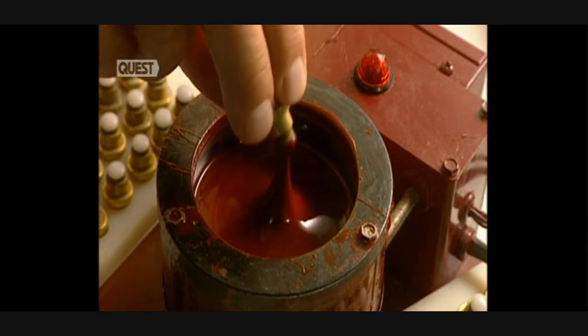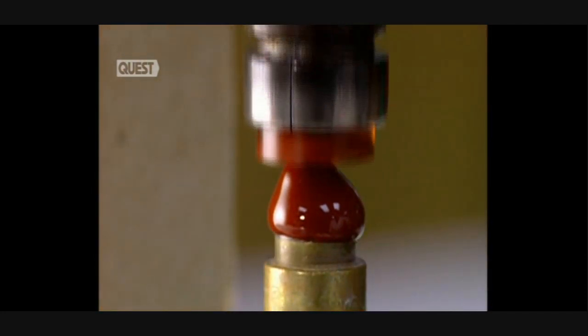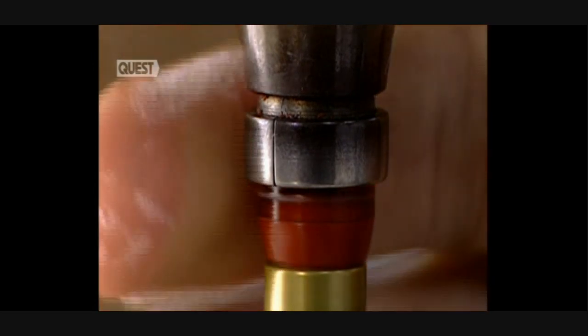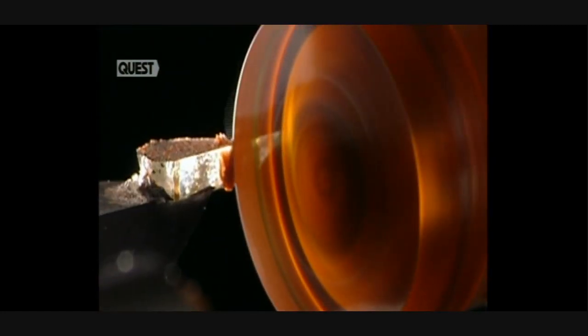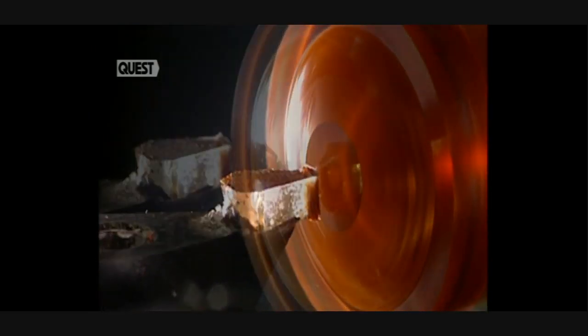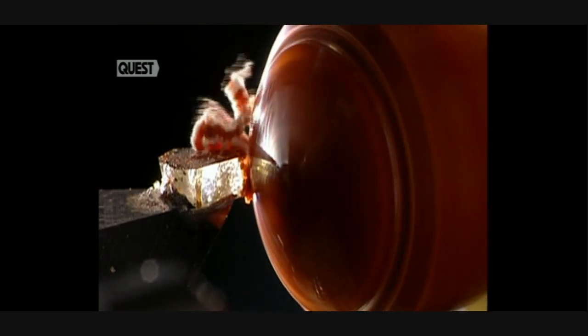The outer surface is then shaped — the part which touches the eyelid. The lens is glued to a spinning arm with a special wax, which will be removed later by an ultrasound device. The wax is moulded in just seconds. The outer diameter of the lens is now shaped as the computer-controlled arm effortlessly cuts away the excess polymer and is polished.